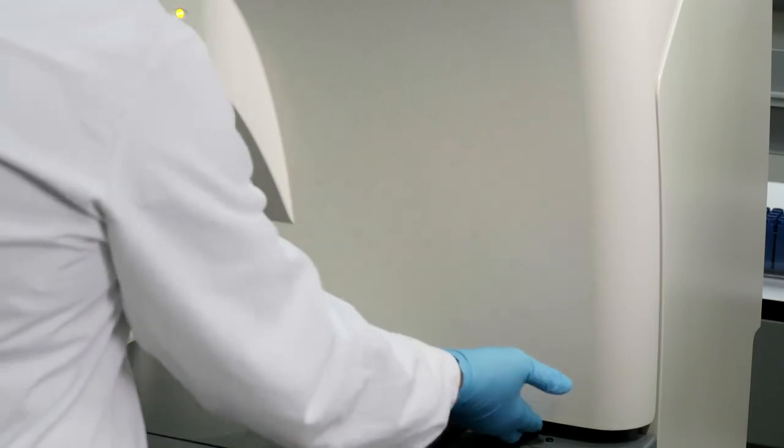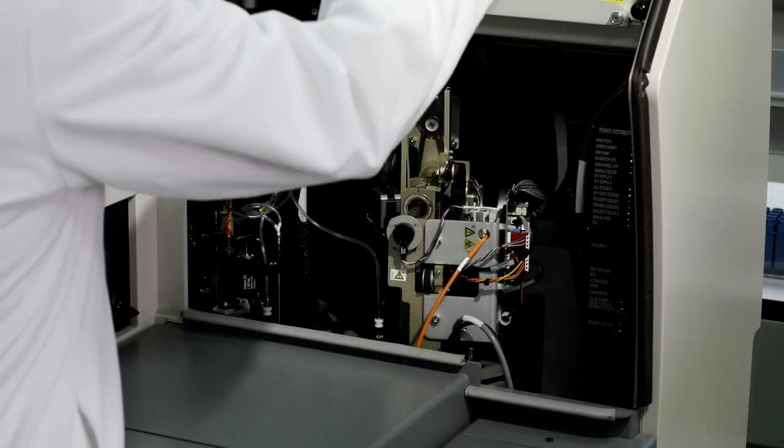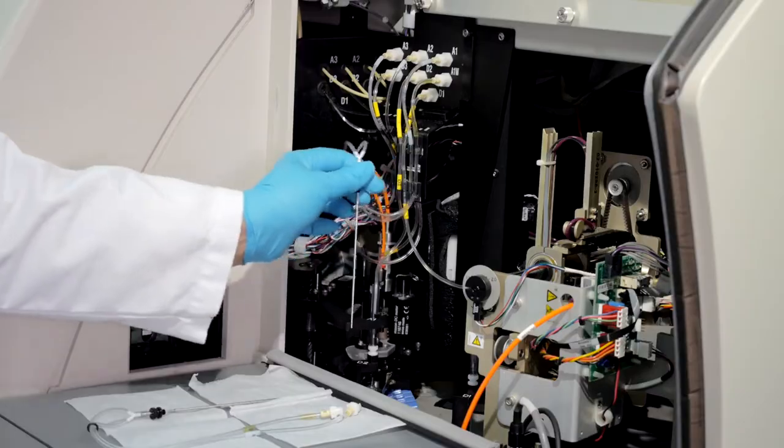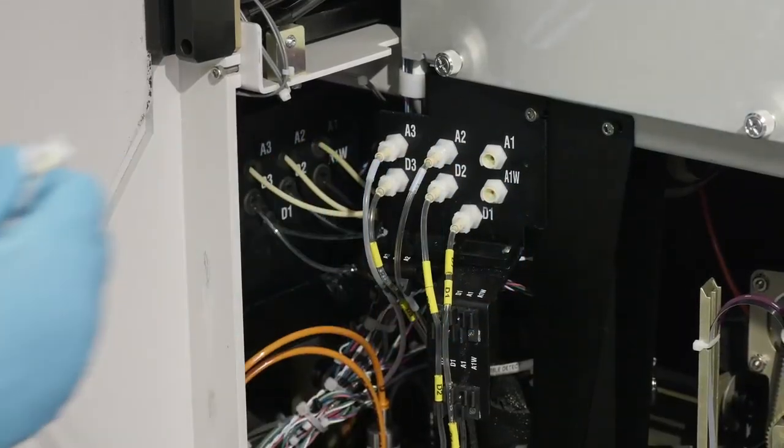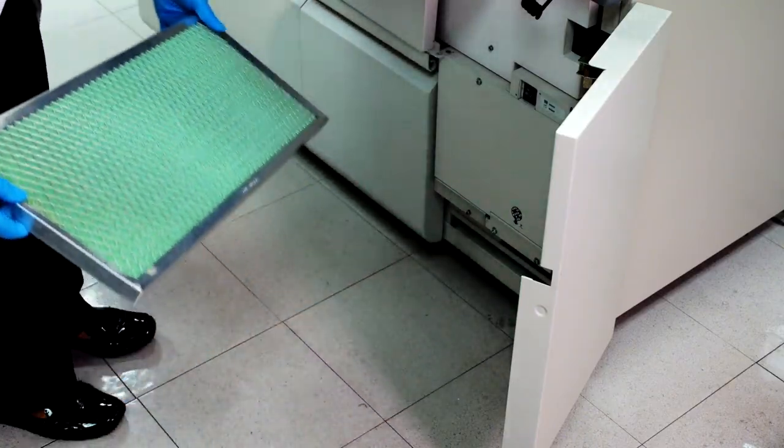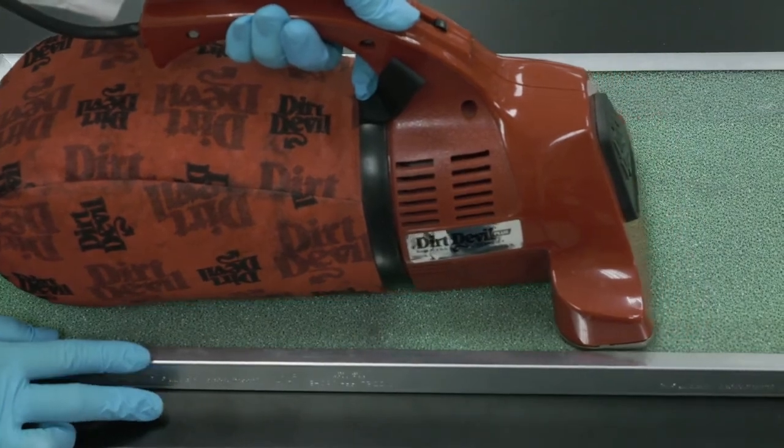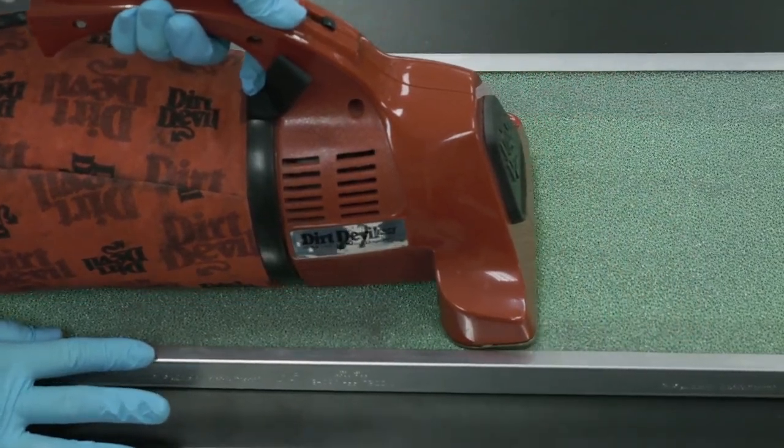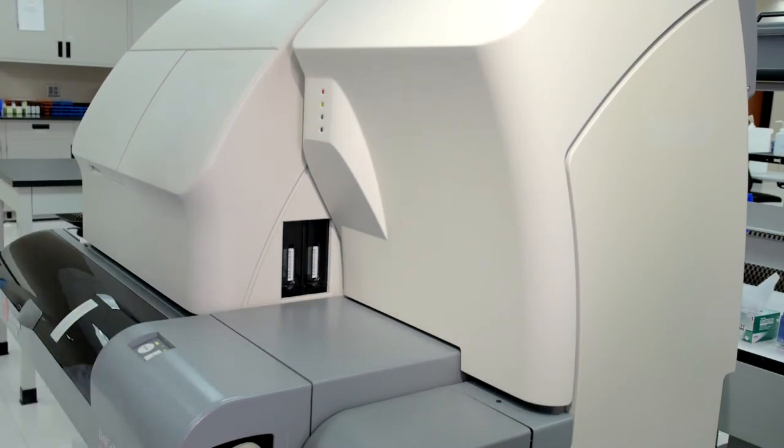For example, since debris can impede system performance, it's essential to remove and install clean aspirate probes and vacuum the system's air filter to remove any buildup. Like all the other maintenance procedures, it's so efficient users complete the process in mere minutes.